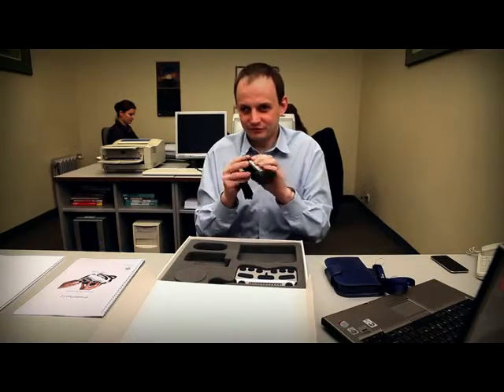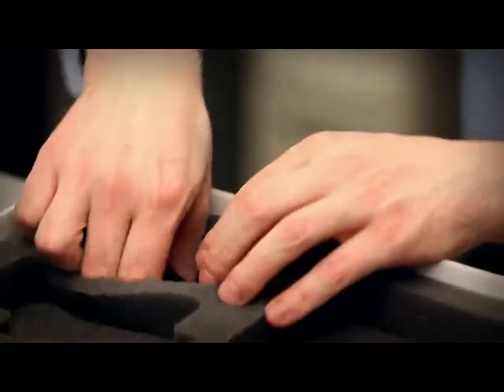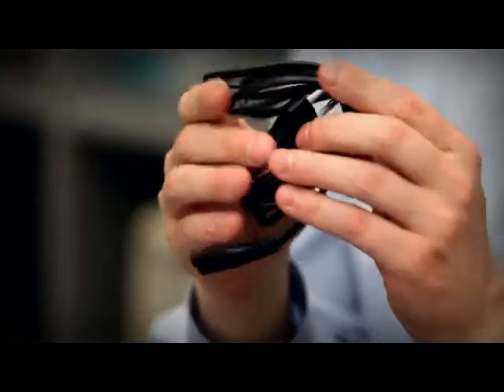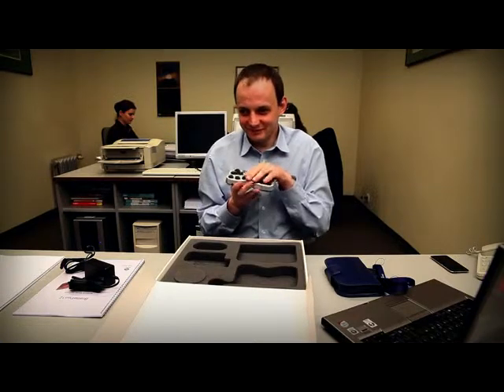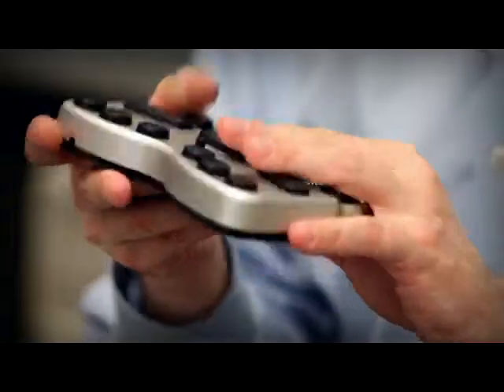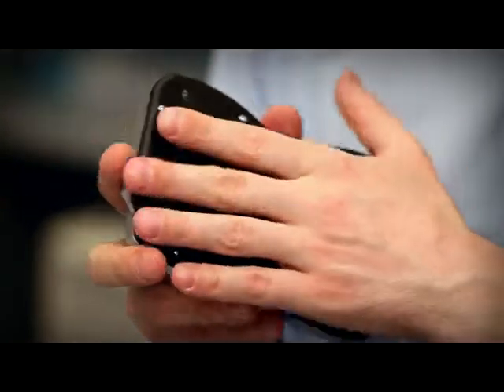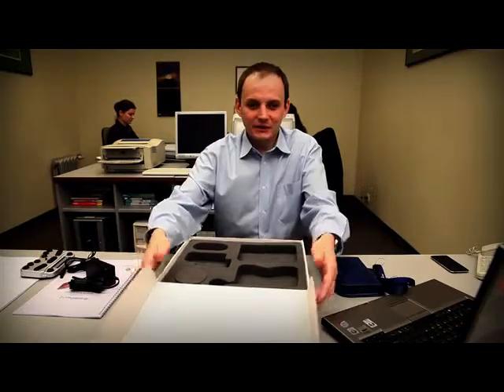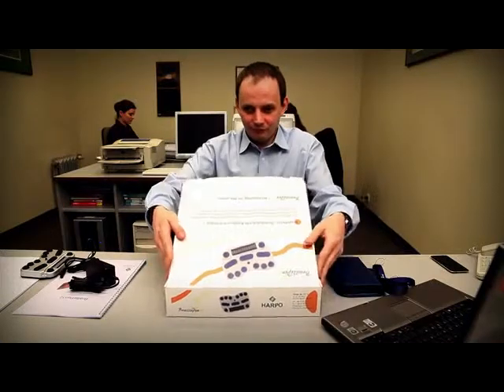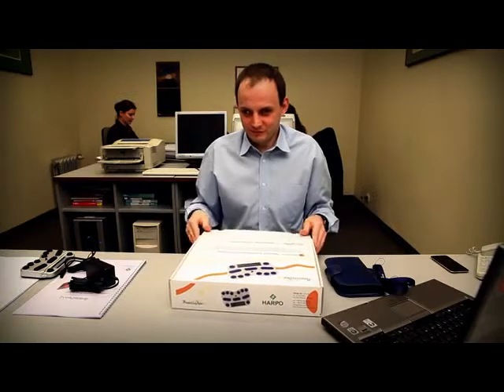The power charger with lead cable. And finally, the Braille Pen 12 itself. We advise that you keep the box with its foam packing in case you ever need to ship the Braille Pen 12 anywhere.